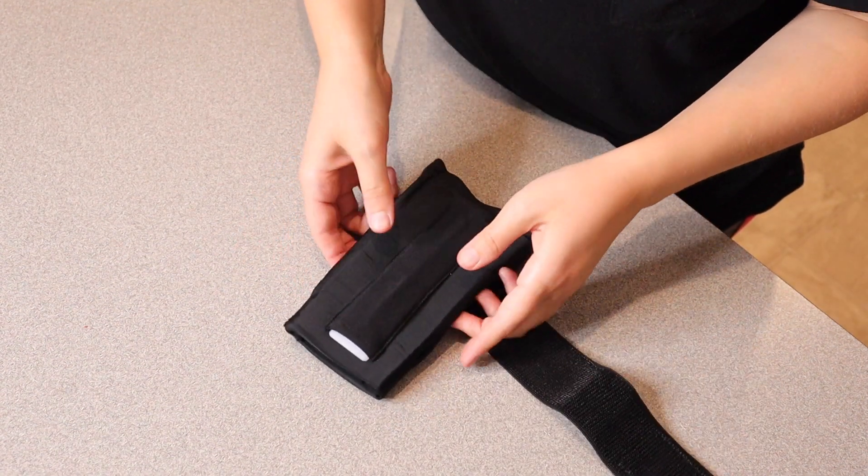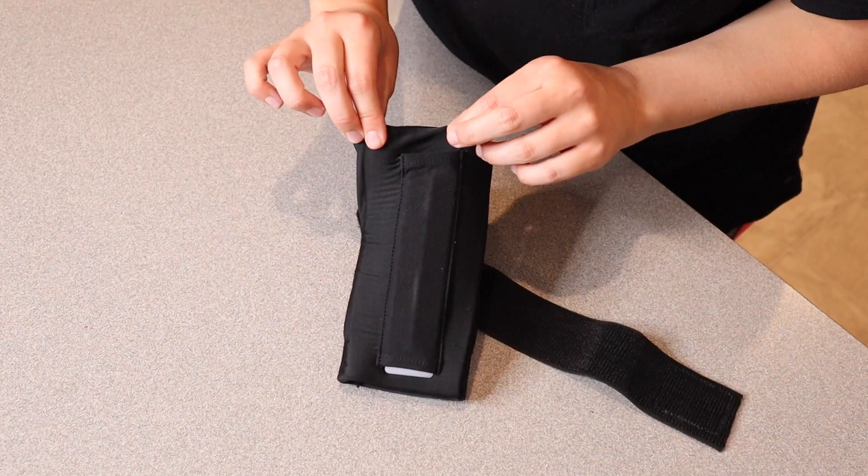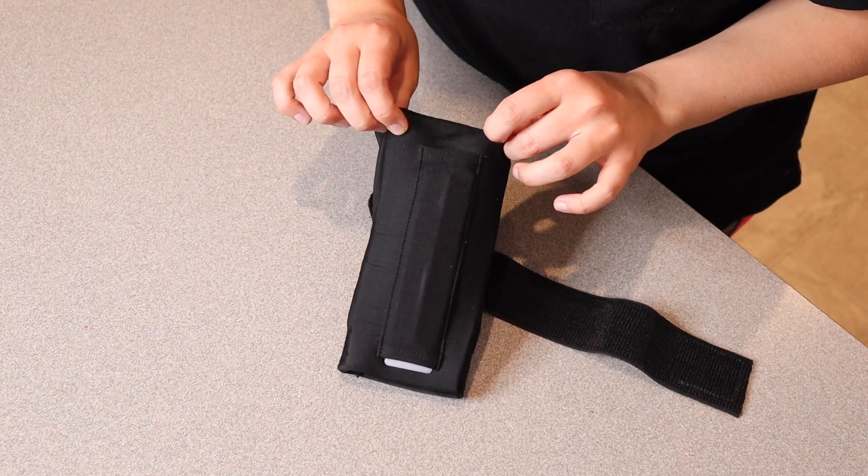And then once you take this out of the freezer you're just gonna wipe off any moisture that's on here and pull it over the required area for approximately 15 to 20 minutes or whatever you find is most comfortable.